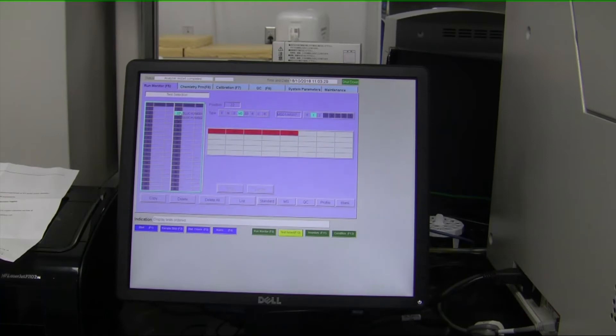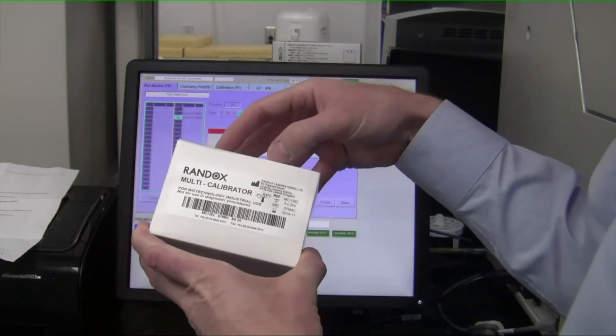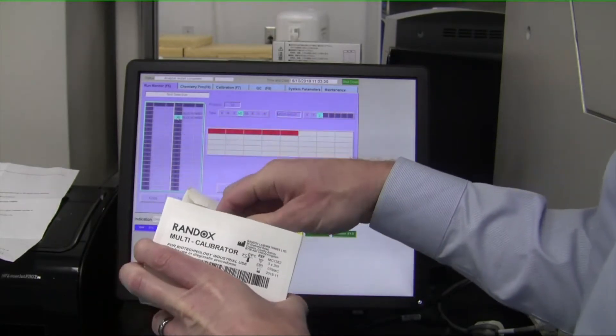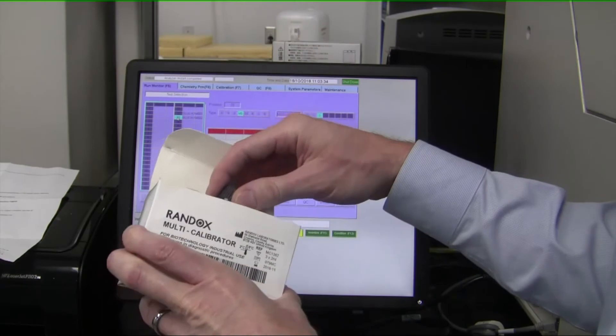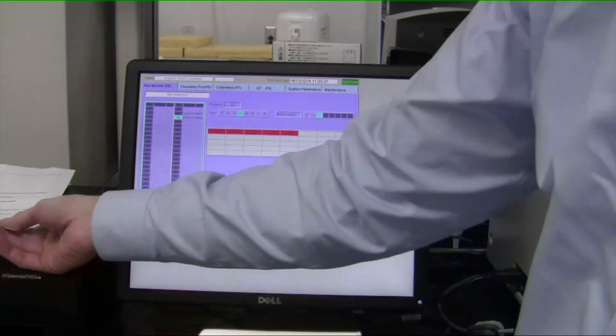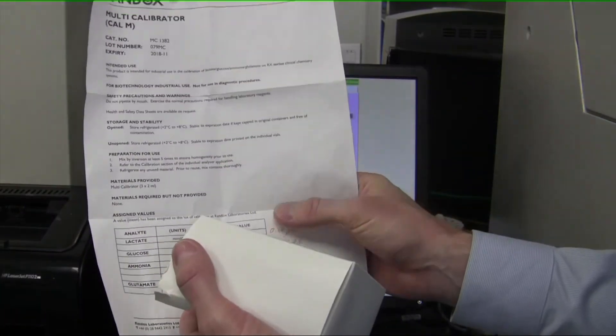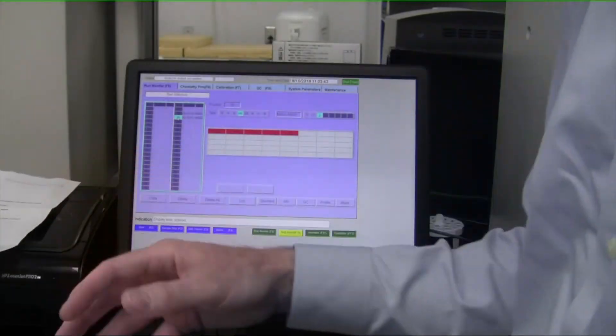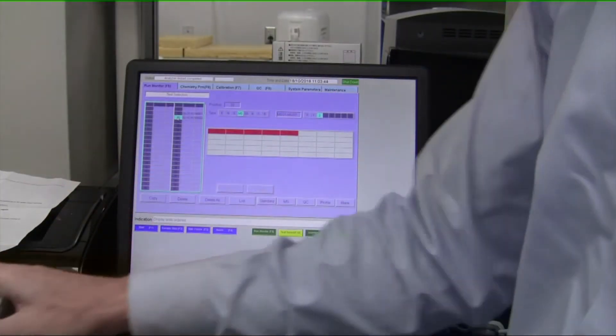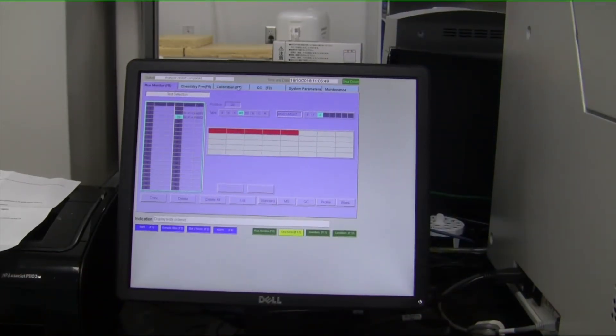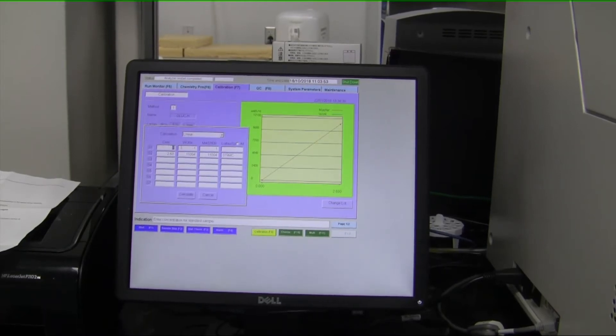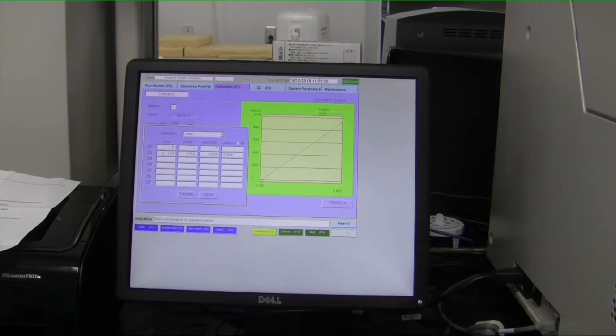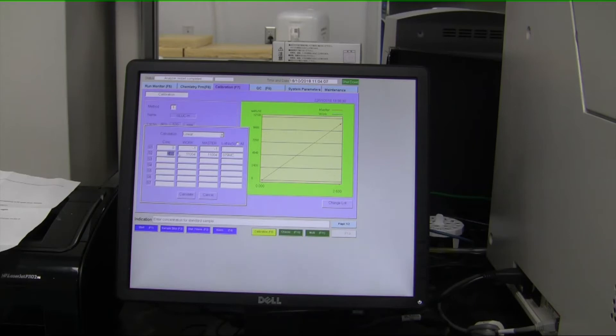The first one is always going to be the zero point, which is water or saline, and then the second point is always going to be the calibrator material itself, which comes from the manufacturer. It comes in a liquid form that's in a bottle, and inside of this box comes a data sheet. The data sheet tells you the exact concentration of this calibrator material. From that data sheet that comes with the calibrator material, if we simply go to calibration and then we go to parameters here, we can enter in zero, which is going to be the water or the saline. And here is where we enter the value from the data sheet. So in this example, the glucose calibrator material concentration that came from the manufacturer designates on the data sheet that the value is 2.63.